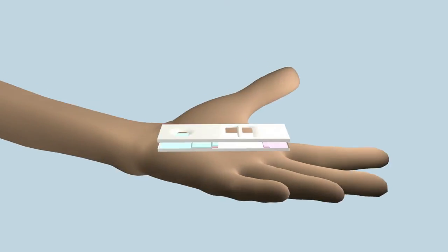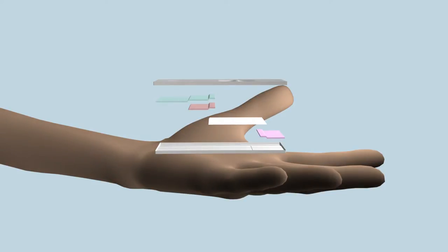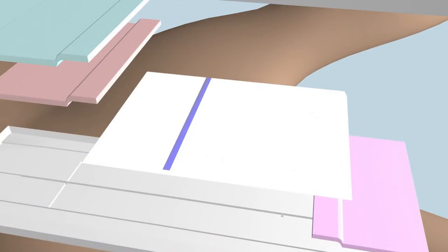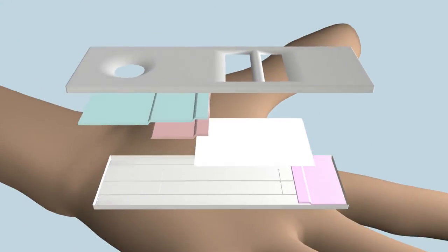In our prototype, we have four main components inside a plastic casing. There is a nitrocellulose strip with both a positive test line and a control line. The control line is important to show that the test is still functional after storage.